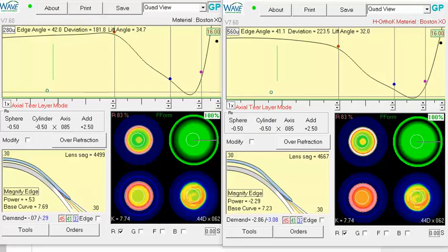Hello, and thank you for following up with WAVE. My understanding is you're trying to go from your fourth design to increase the clearance centrally by about 200.